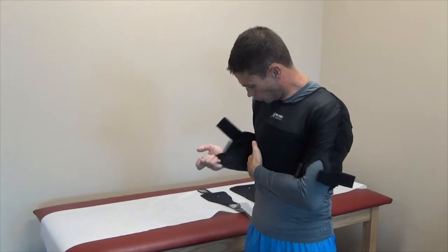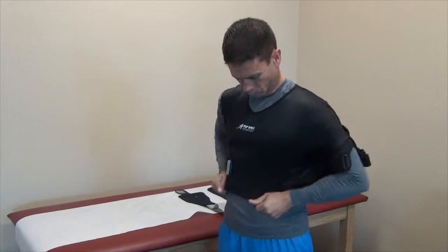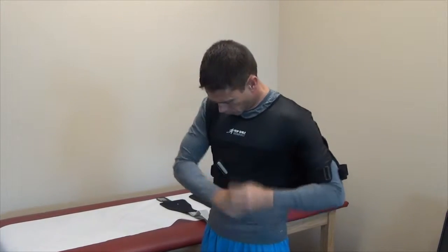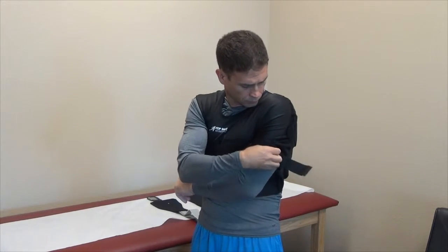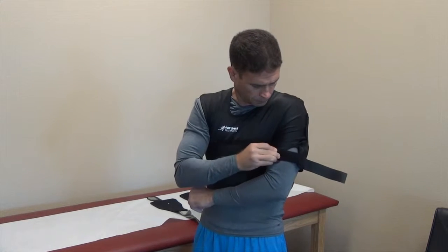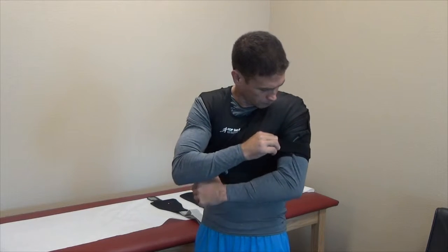Secure the torso portion of the brace to the front panel by affixing the two hook loop straps above and below the D-ring assembly on the front of the brace. Secure the arm strap. Flex the arm while tensioning the strap.